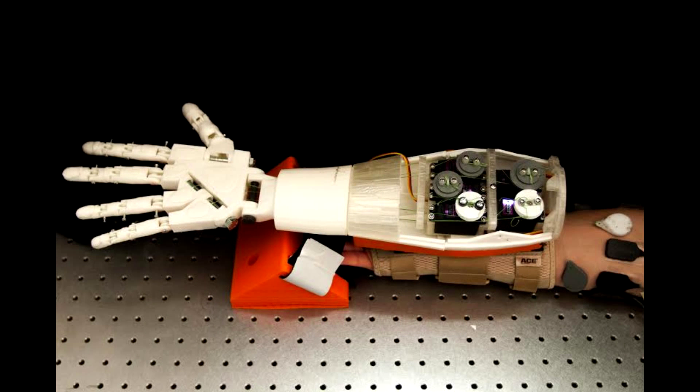The simplicity, low cost, low power consumption, light weight, small contact area, and overall comfort make our passive linear skin stretch device well-suited for multiple degree of freedom proprioceptive tasks.